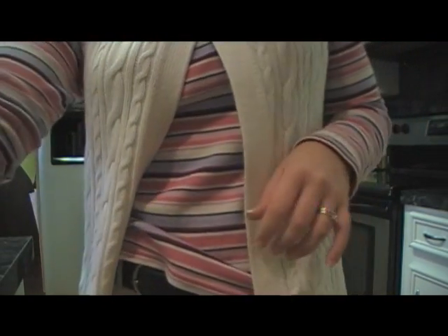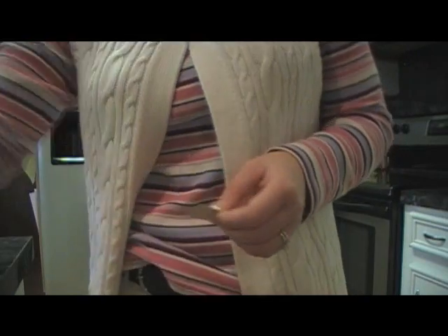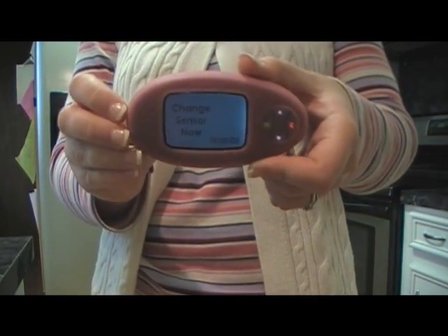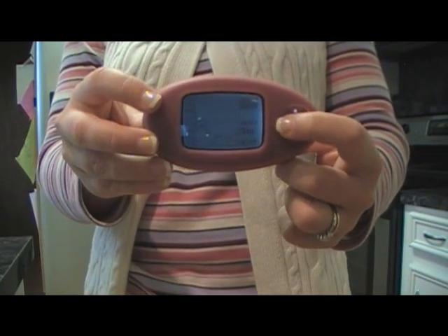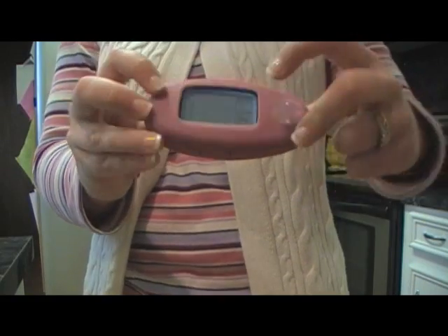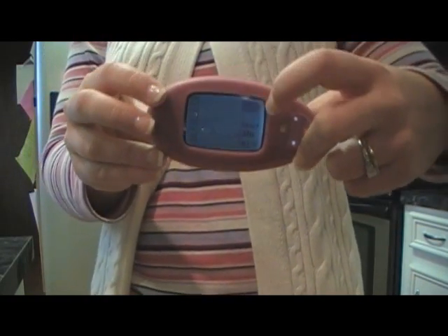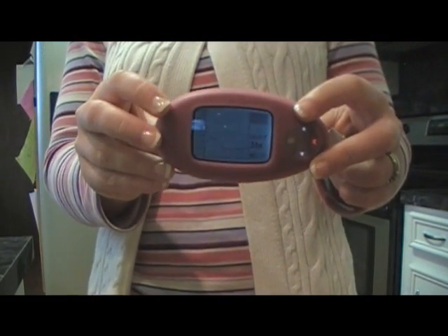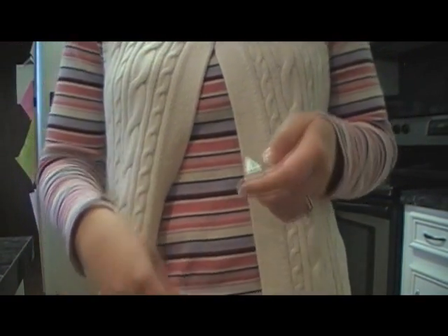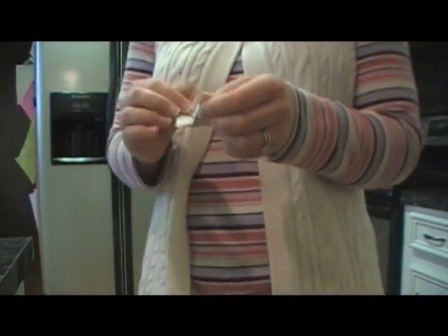I'm getting the receiver set up — it says 'change it now' and I just hit OK, because that's what I'm doing. And when you do that, this goes blank. It automatically stops for you. Now, you could go through the steps to go ahead and restart the sensor, but since I'm inserting a new one, I'm not going to do that.